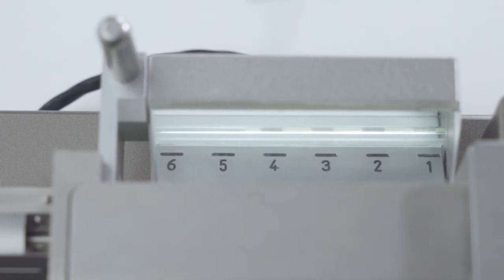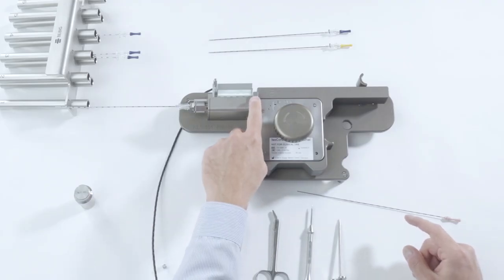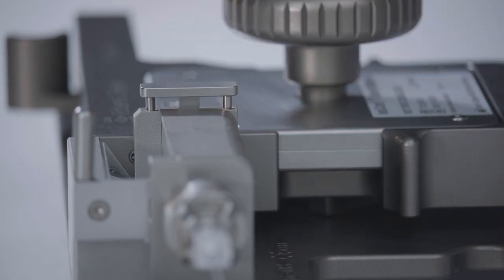To ensure you cut the seed chain in the middle of a spacer, check that the last seed you move is exactly above the first position. Press the plate on the cutting system down to cut the positioned seed chain from the seed chain in the magazine.